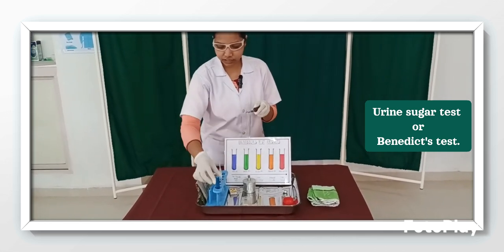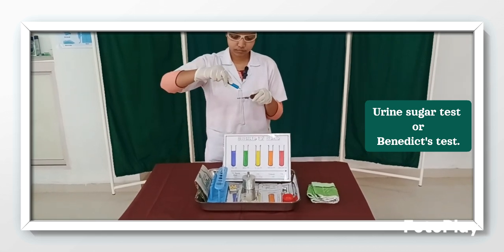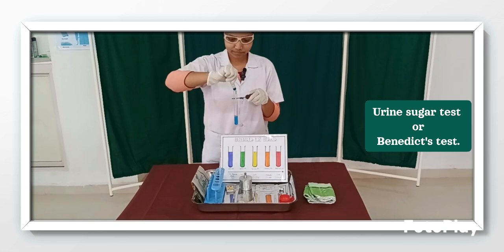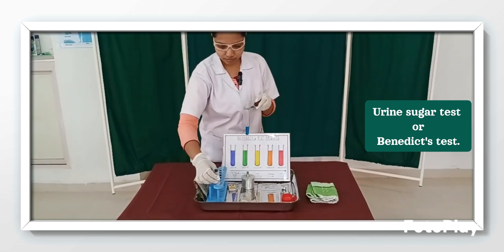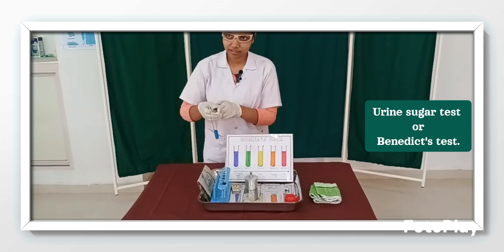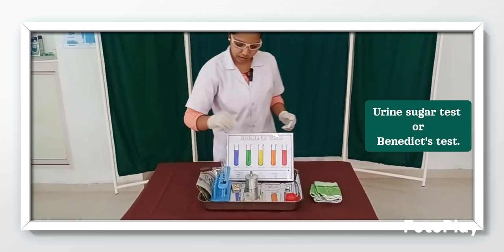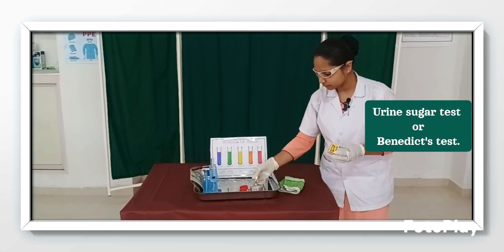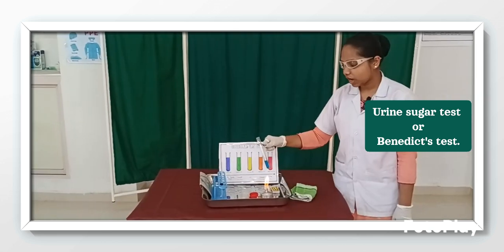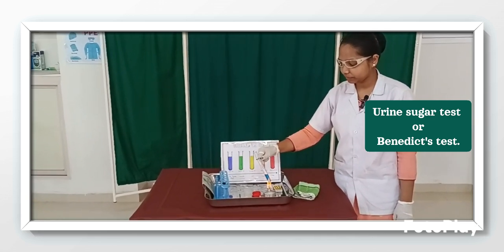Then I am going to add the 5 ml of Benedict solution, placing it in the test tube stand, and I am going to heat the Benedict solution over the spirit lamp.